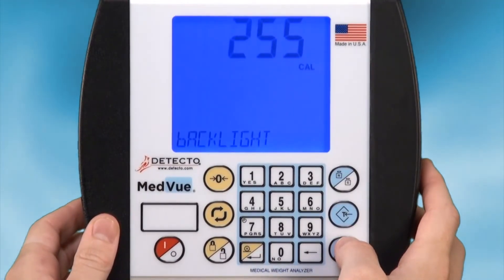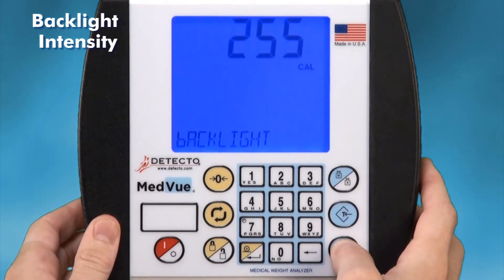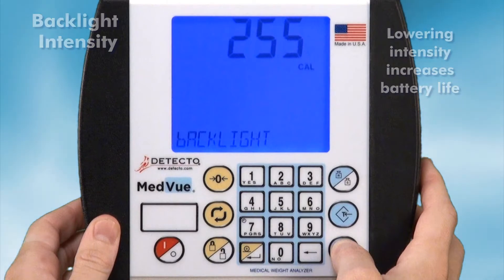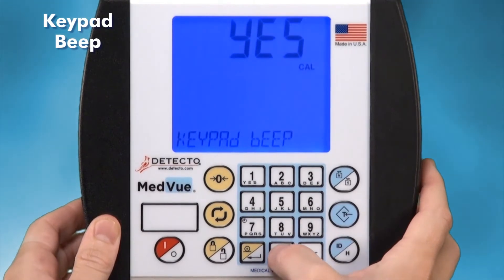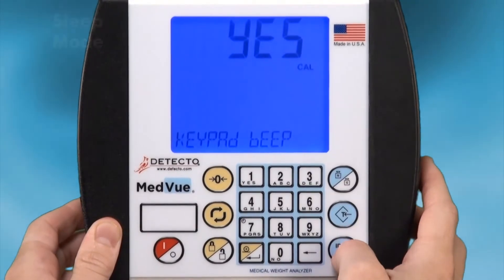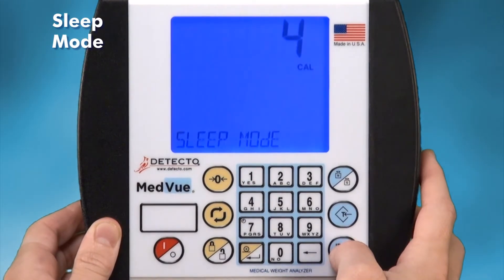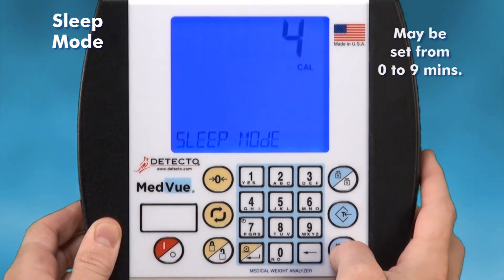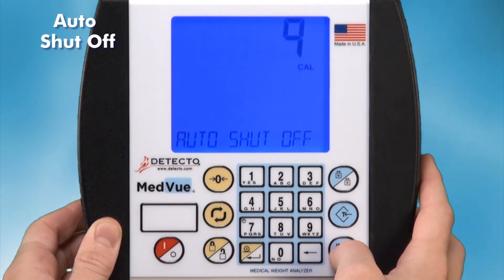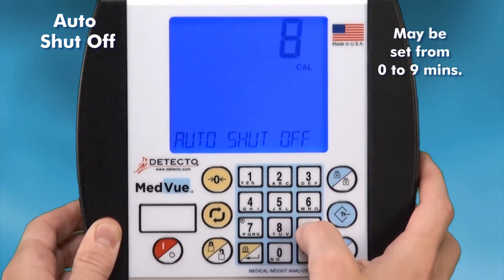Other functions that may be altered include backlight intensity, which may be set anywhere in the spectrum from off to maximum — lowering the intensity increases battery life. Keypad beep controls whether a key makes a beep sound when pressed and may be toggled on or off. Sleep mode is how long the MedVue will wait for no activity before going into a power-conserving mode and may be set from 0 to 9 minutes. Auto shut-off is like sleep mode but instead powers the indicator fully off after a period of time and may also be set from 0 to 9 minutes.